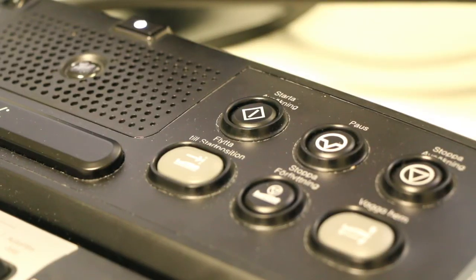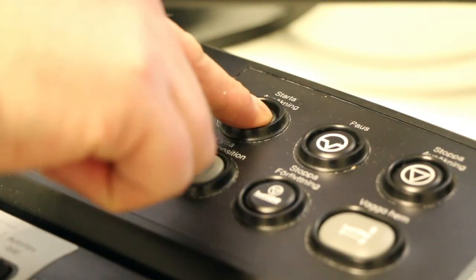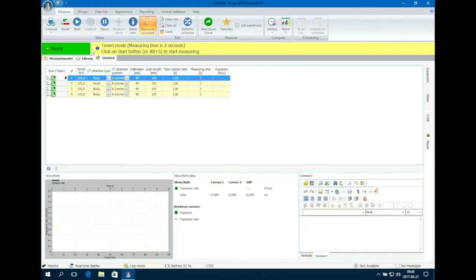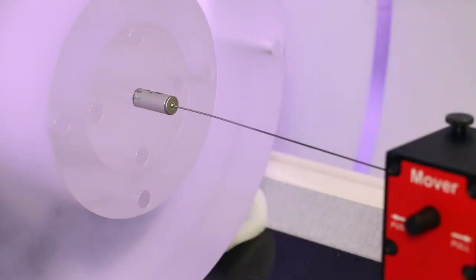We are now ready to do the first measurement. Start the measurement process on your CT. Wait for the delay that occurs in some CTs. Press start in the Ocean software and the probe will move through the X-ray beam.